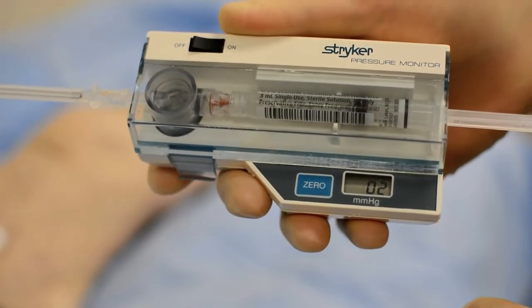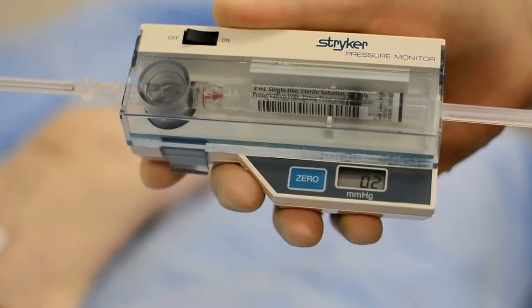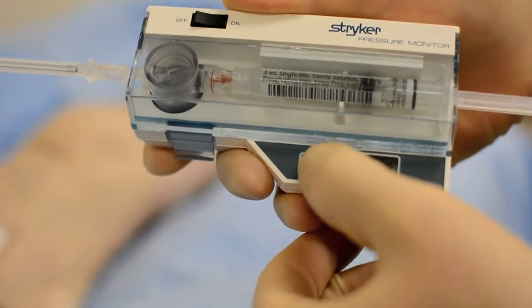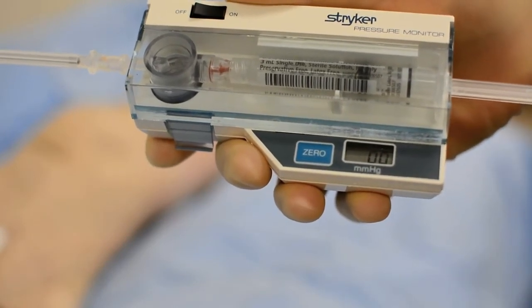This is a close-up view of zeroing the device. You can see the device in the on position and verify the device goes to zero.